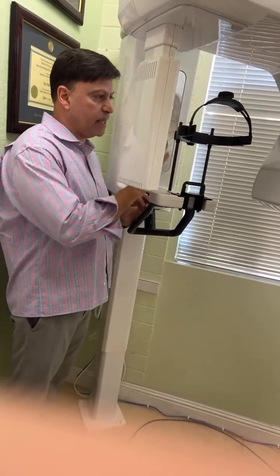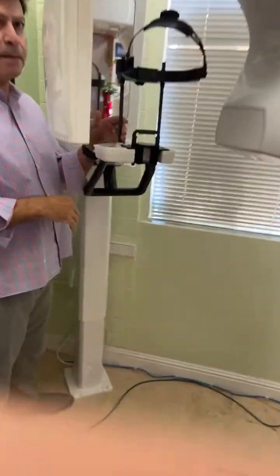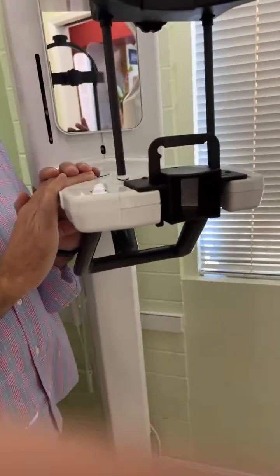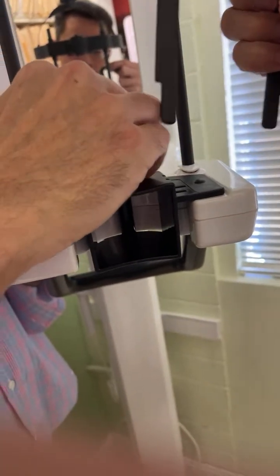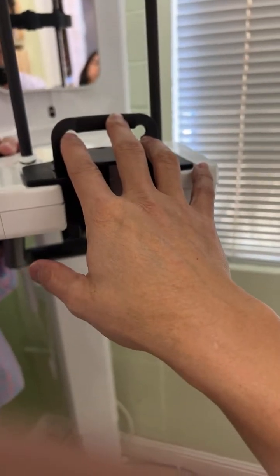So this is the head support, and this is for positioning the patient. Let's say I'm taking number 3, but I forgot to have this. Is that okay? You're not going to have that in there because then they're going to be too far forward in the device or maybe too far back. This is allowing you to give them some guidelines. It should always be there.